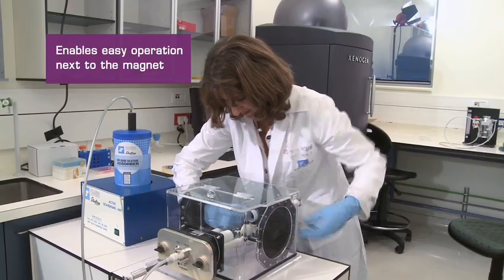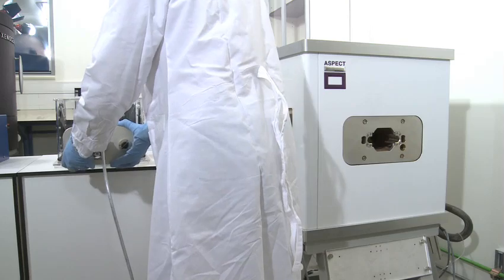Aspect animal handling accessory enables easy operation next to the magnet.